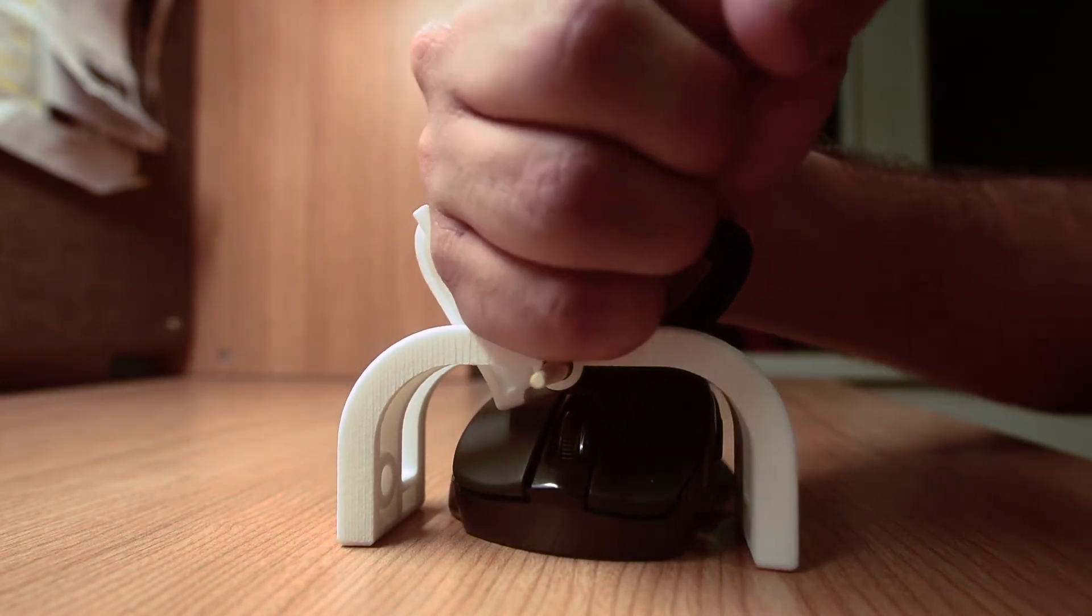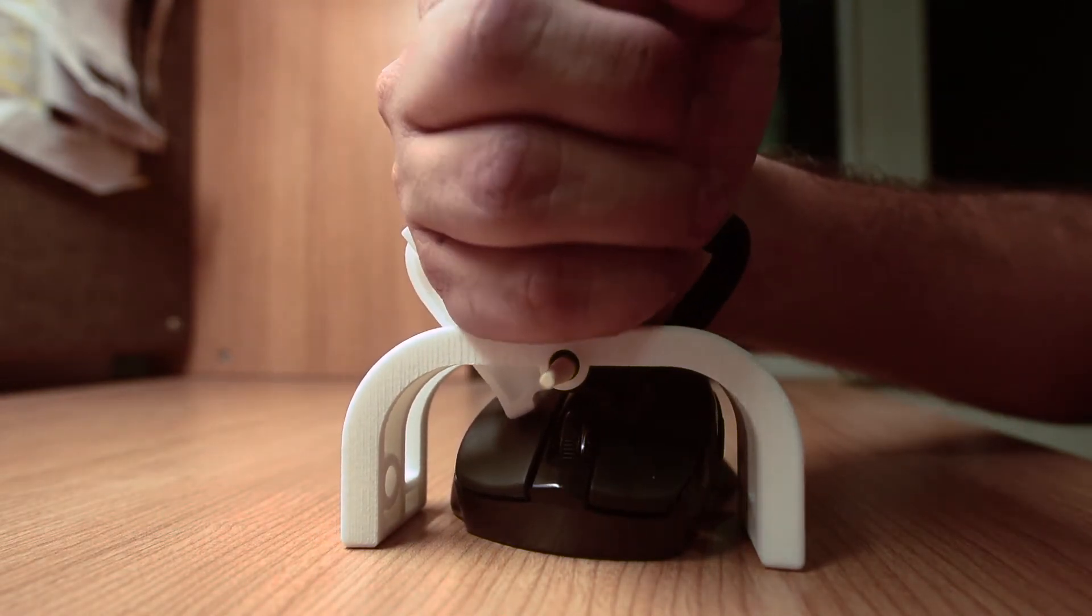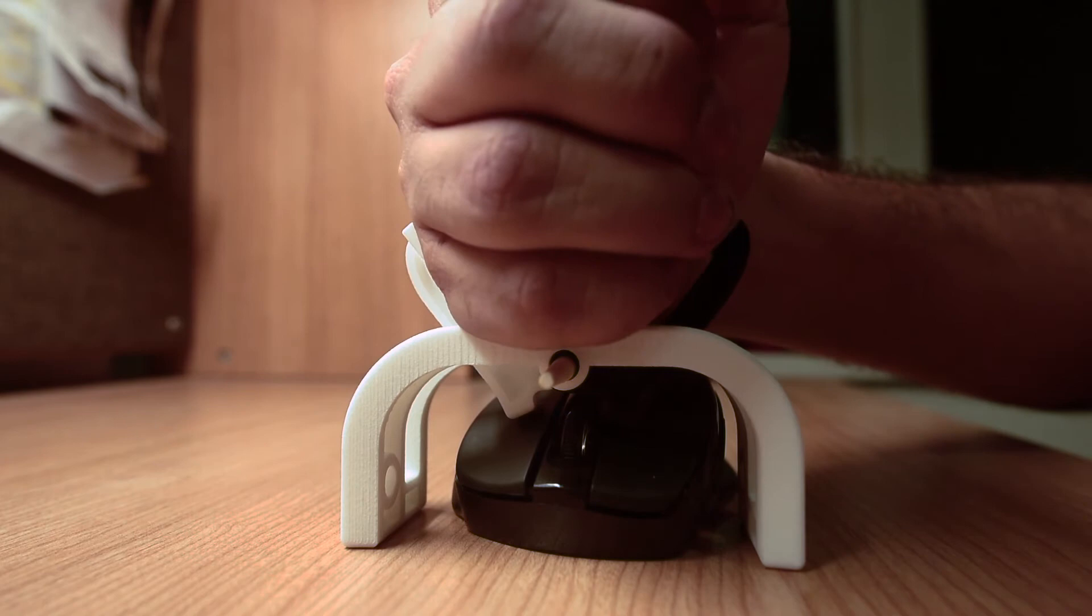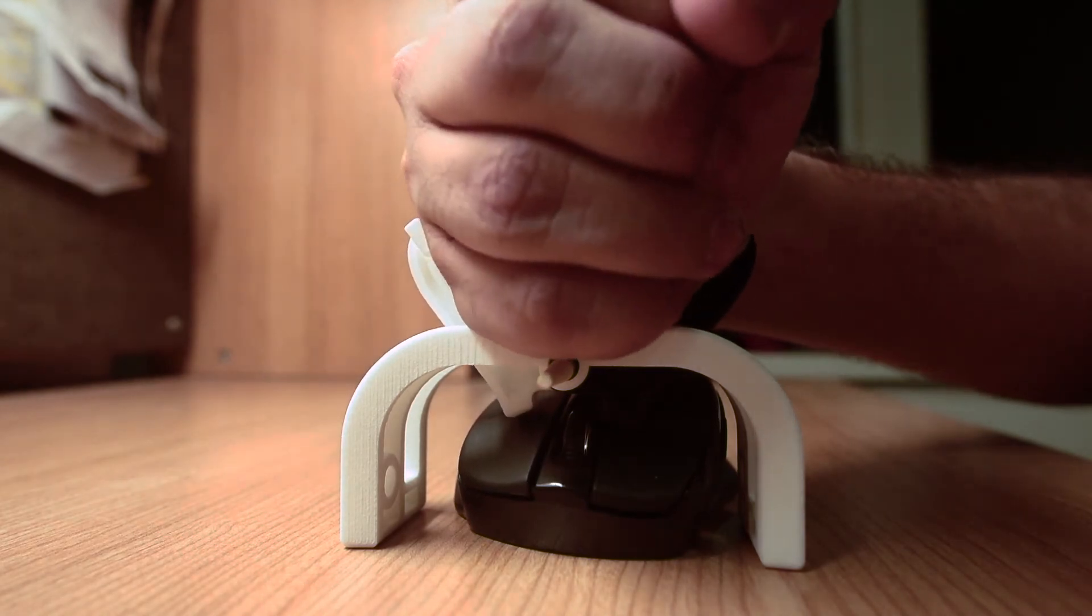Ken presses the buttons by moving his entire hand left or right and hitting the arm. The arms act as levers and click the respective buttons on the mouse.